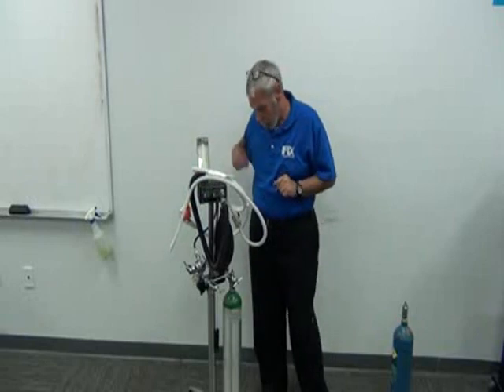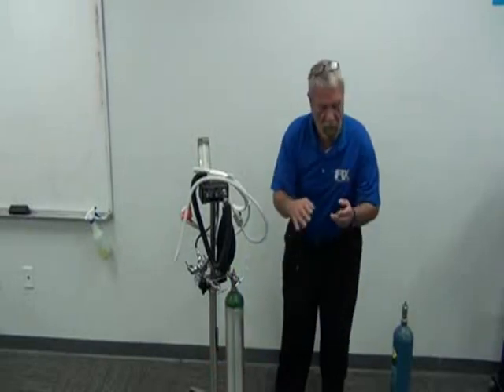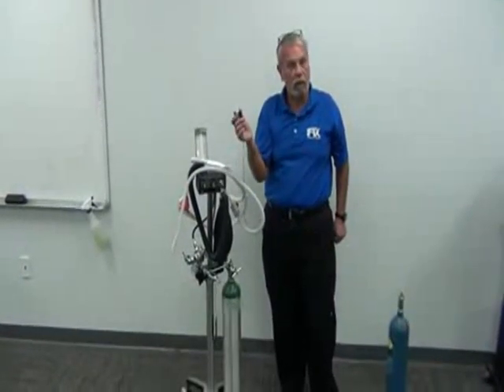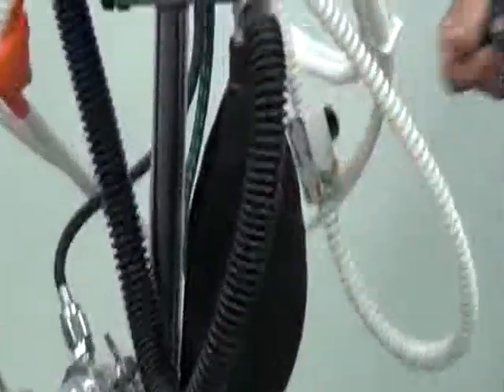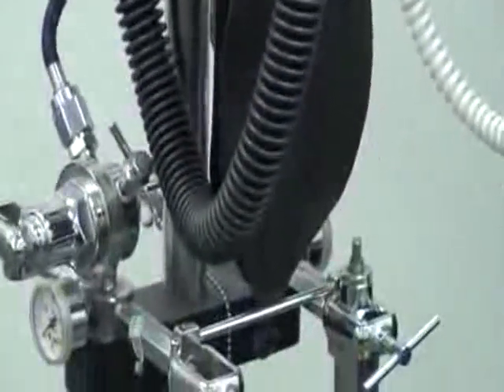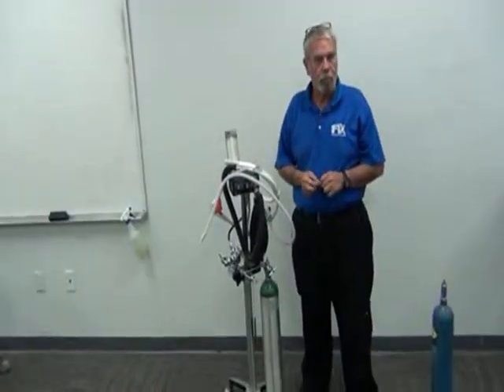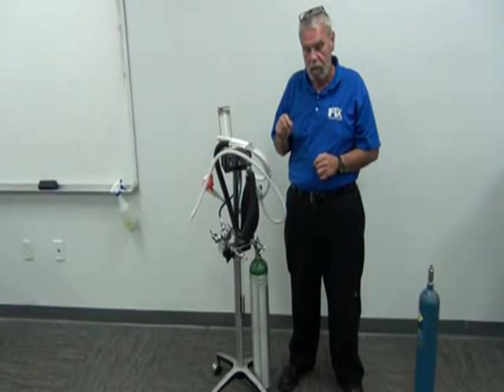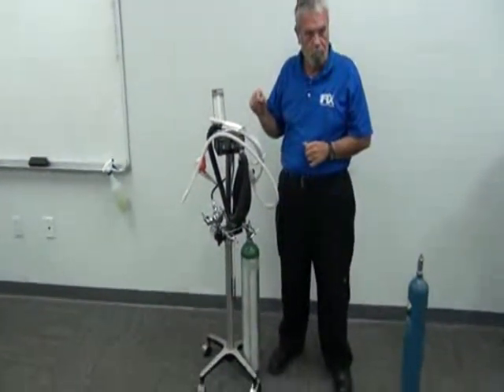A good rule of thumb is to actually, at the end of use, if they keep having problems with the nitrous or the oxygen leaking, you will get a wrench with each mobile cart, and you'll get a wrench with the stationary systems too. Cut your tanks off at night. Lefty-loosey, righty-tighty, and cut the tanks off at night. That way you're not pressurizing the soft tubings all night, and there's less of a chance for leakage. Scavenging is very important. Like I said, 9 out of 10 of your calls on this is going to be too much scavenging. Okay?